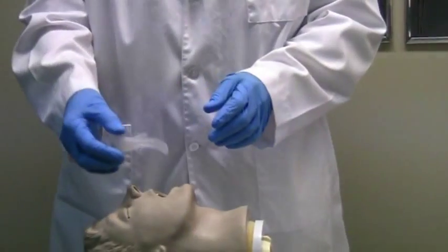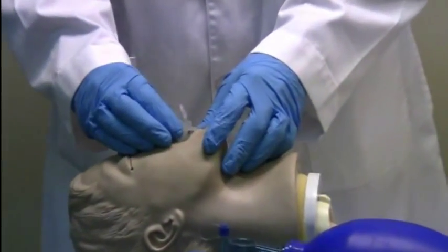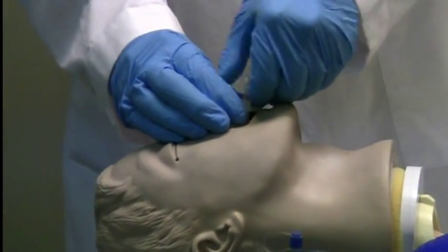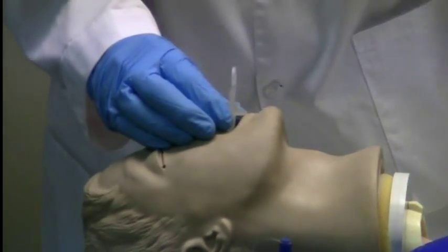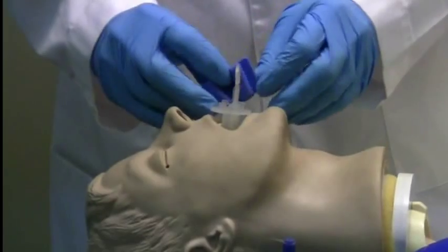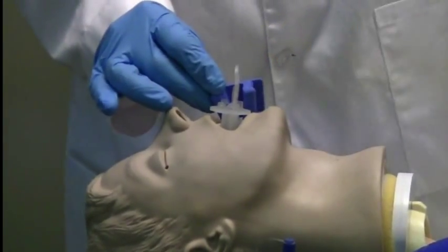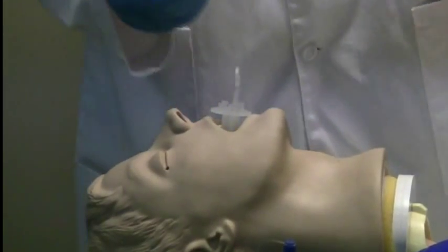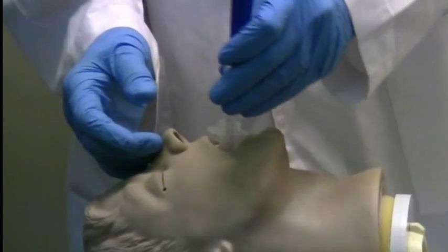The fully adjustable oropharyngeal airway has 5 mm increments from the standard 10 mm reference points. In addition, it's easy to work around placement of a standard bite block, and maintenance of the airway and suctioning is accomplished easily with a Yankauer suction.